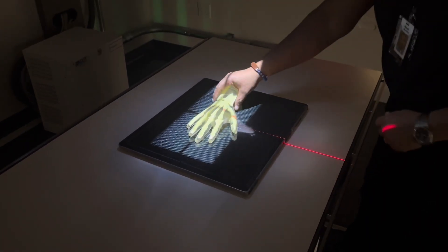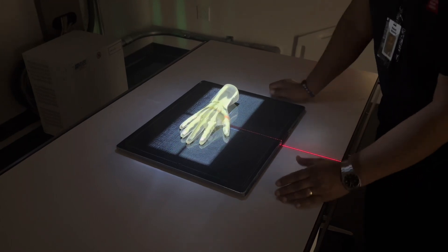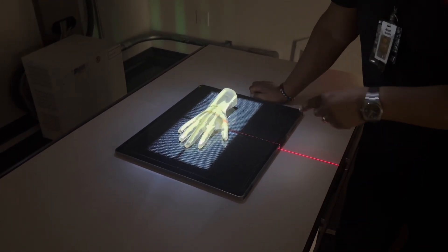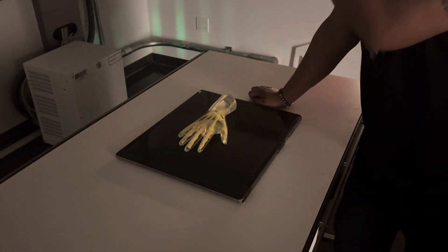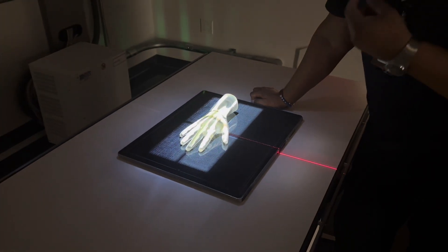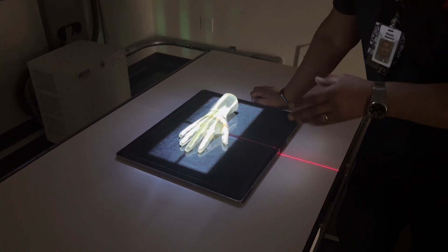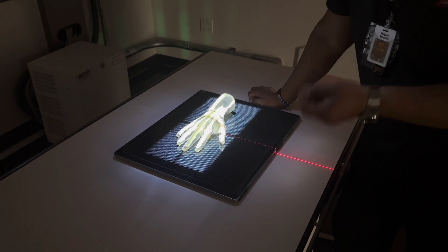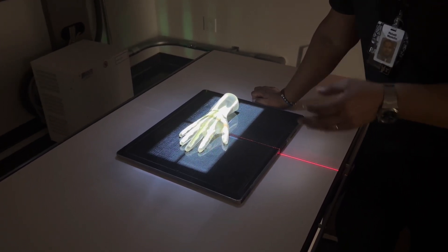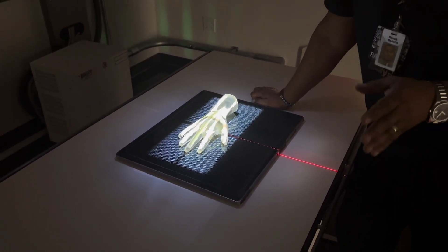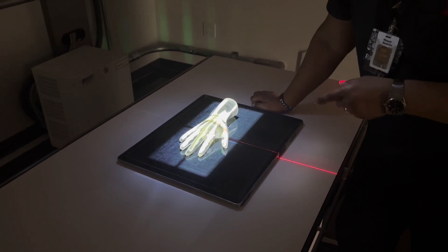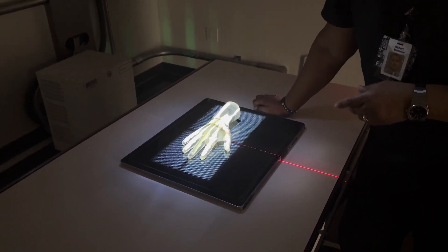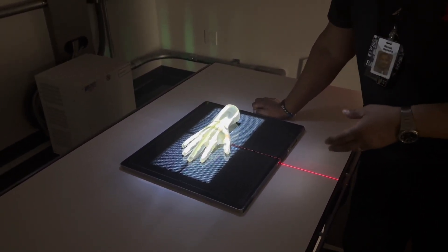If you're to angle the IR, do you see how the shadow gets longer? So elongation is going to occur if you angle the IR or if you angle your tube. That's how you're going to get elongation. So there's two types of distortion, distortion is this misrepresentation of size or shape. Keep that in mind. So misrepresentation of size or shape, that's going to be distortion. So size is magnification, shape is either going to be elongation or foreshortening and that's distortion.